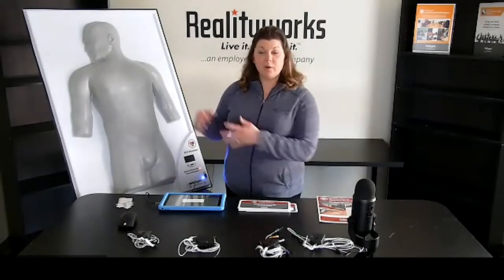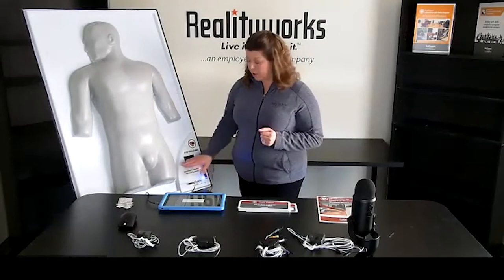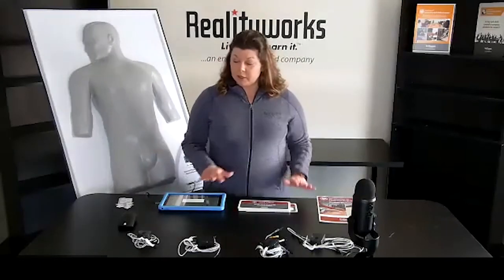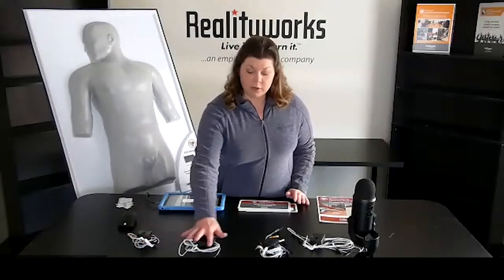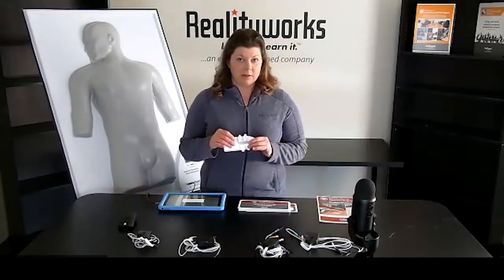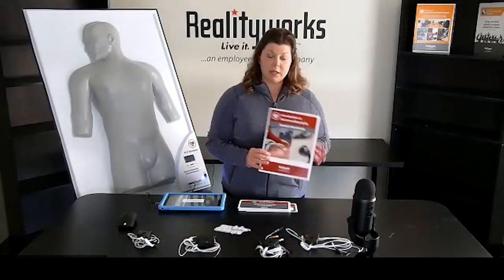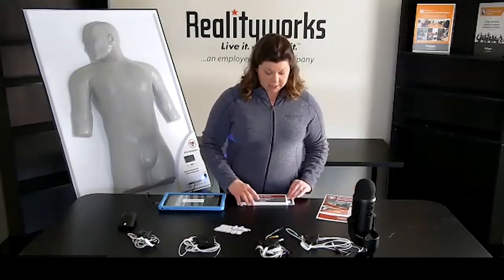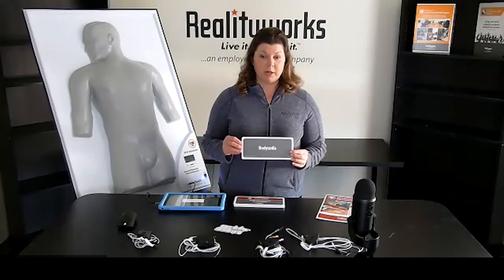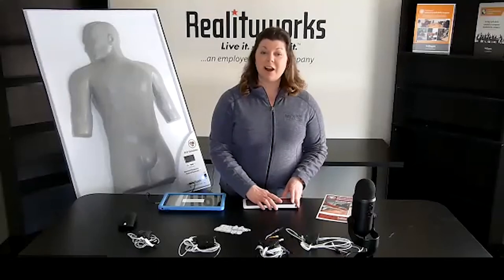So what comes with the simulator? We have the ECG simulator with a power switch in the lower corner and a cord that will run from the simulator to a tablet. The simulator comes with three lead, four lead, five lead, and 12 lead ECG electrode sets, as well as the actual electrode pads. It includes 20 student workbooks, a basic ECG rhythm flashcard set with the rhythm on the front and interpretation on the back, a storage case, a one-year limited warranty, and access to our online curriculum.